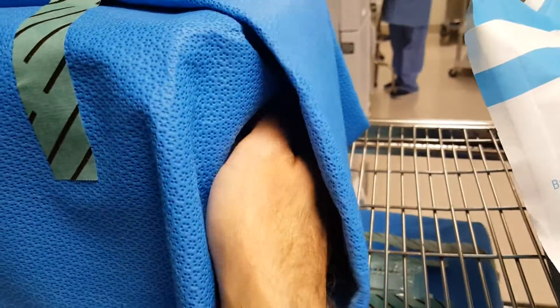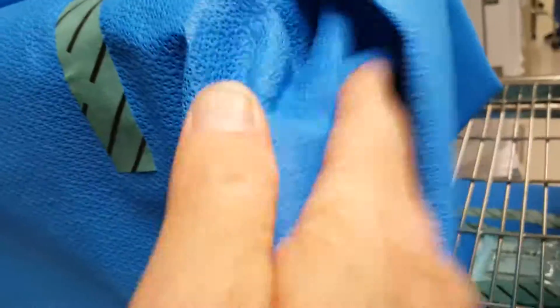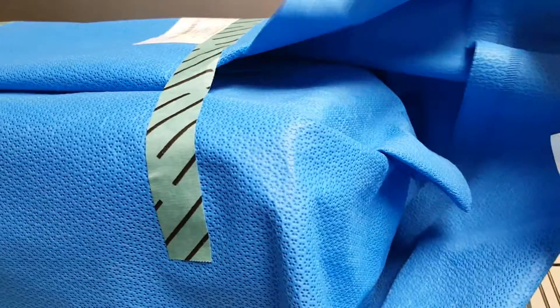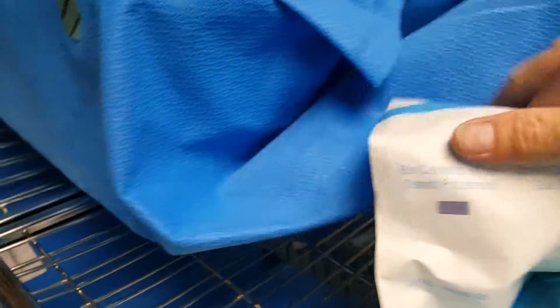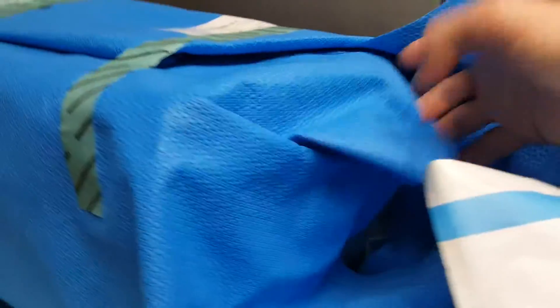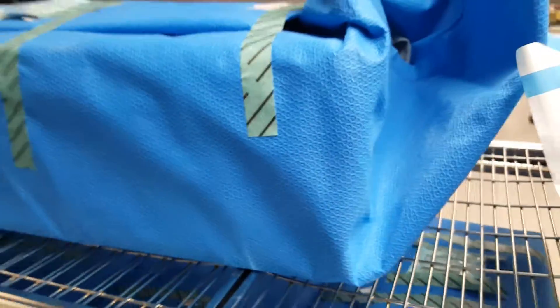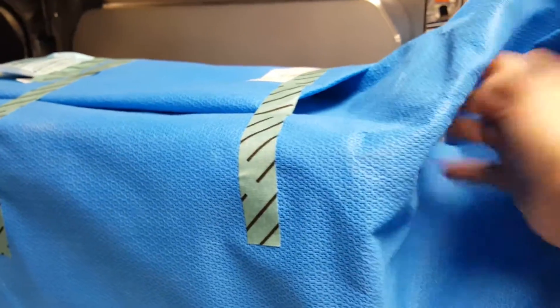I'm touching the metal tray right now, so I'll show you — tuck that back in there. I'm touching the metal here and you can see it. It has to be tight, extremely tight. Pull tight and take down to stay sterile. I'm gonna fix it — I just want you to know that it has to be tight, you have to pull it really tight, like this.